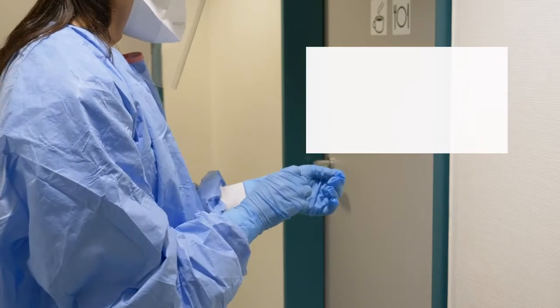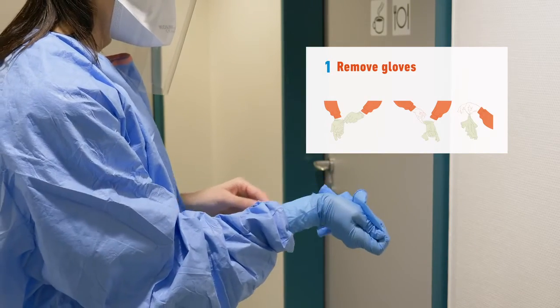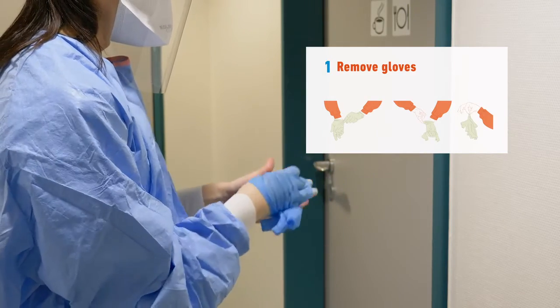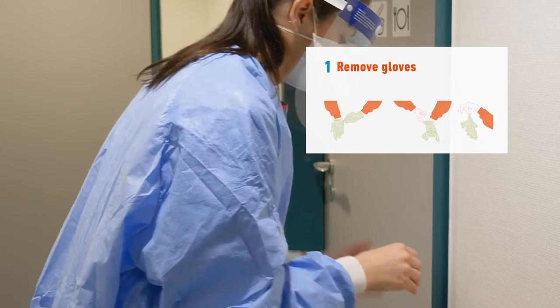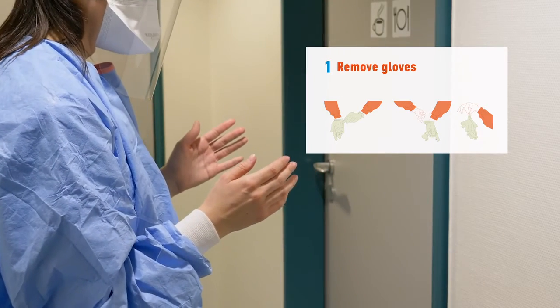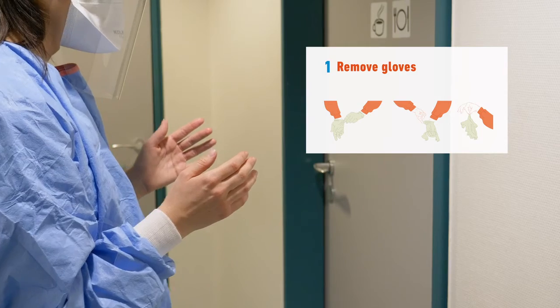The first step is to remove the gloves using the glove-to-glove and skin-to-skin technique. This is the most soiled item, which needs to be removed first and discarded safely.